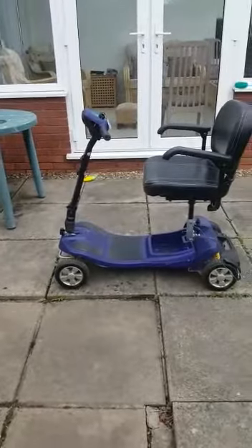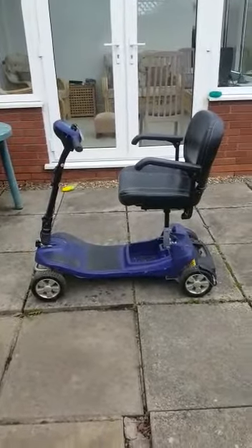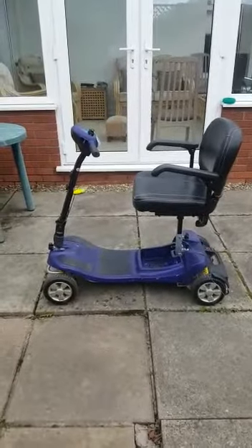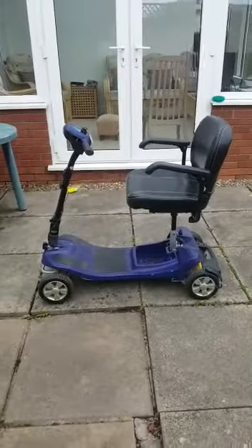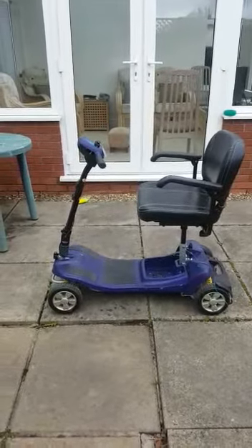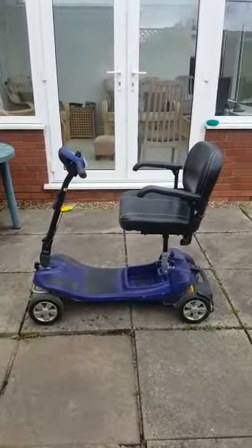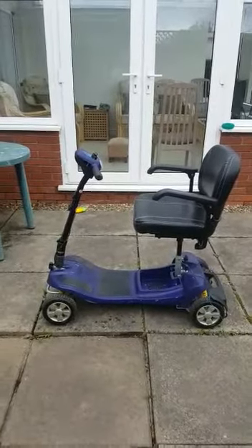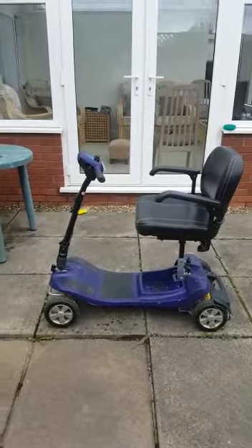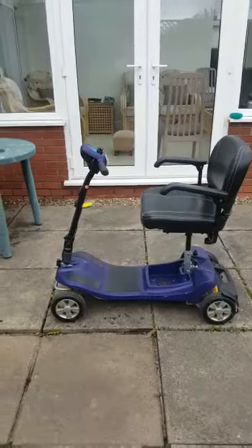This is my review of the Li-Tech Neon 15 motorized scooter, which comes in at a hefty price of £1800. The scooter is basically five months old, but because of lockdown it's only been used for probably about two to three months, and already it's in a really bad condition. I have contacted Careco, who are being really, really difficult about the whole situation, so I'll just run you through my review.